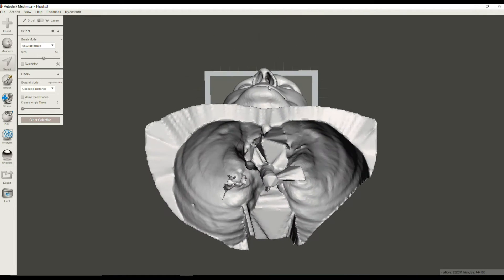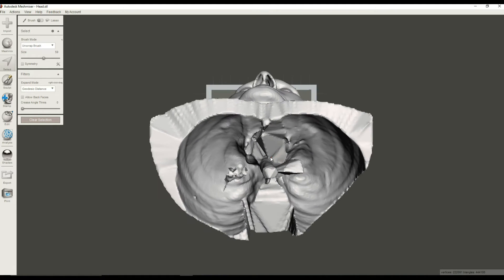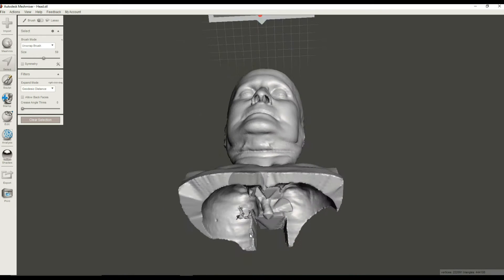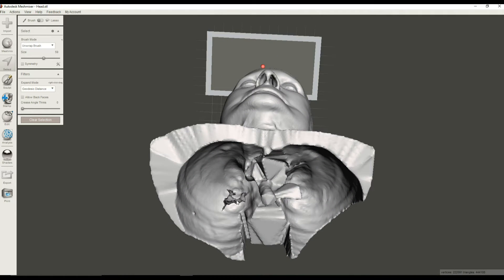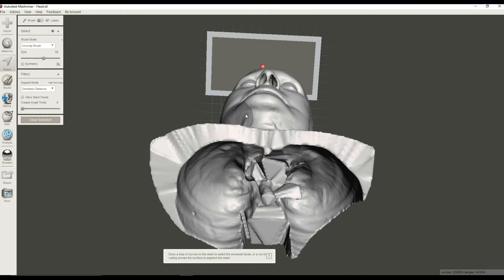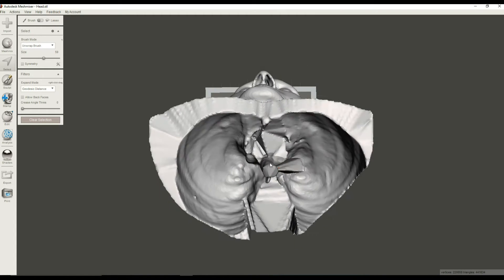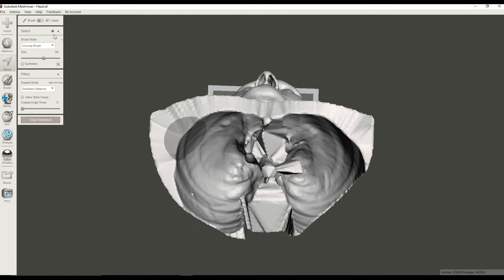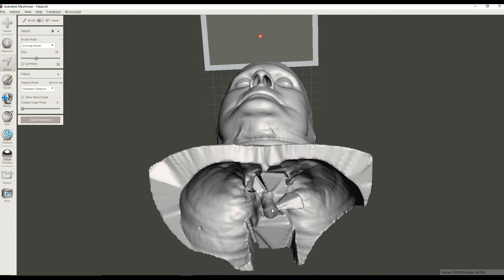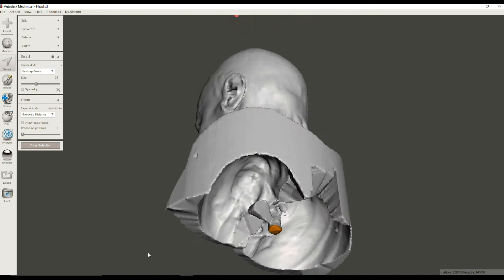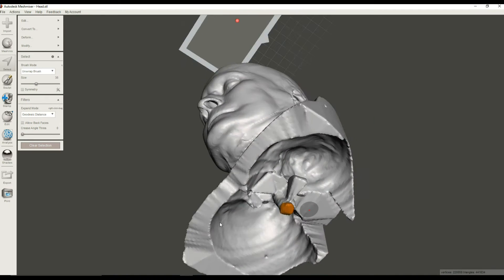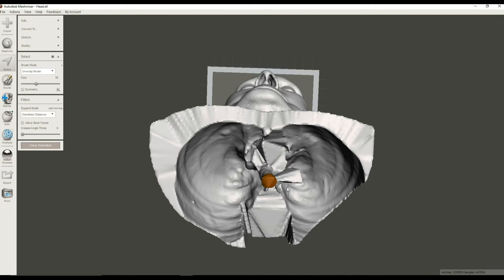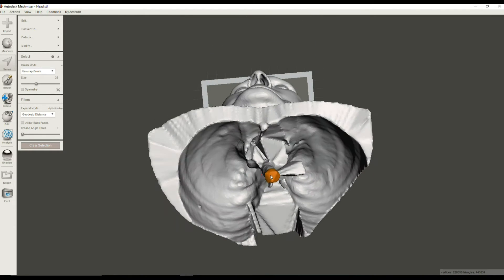Okay, so I'm going to do the same thing on the bottom. And you can see that there's this little free-floating piece of geometry. This is part of probably some pulmonary artery that we don't want. So I'm going to go ahead and select that, hit E to expand, and hit X to delete it. Next we will get this stuff down here, which is actually part of the, looks like the trachea. But we're going to create a big hole in the bottom that will eventually be aiding us to hollow this out.